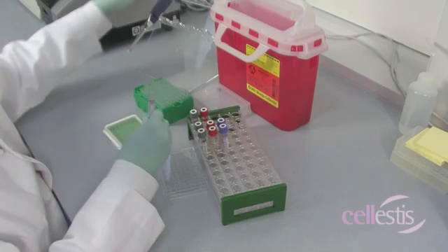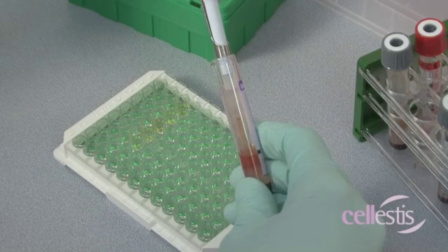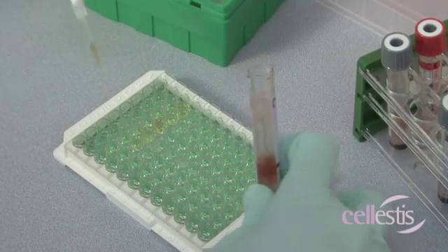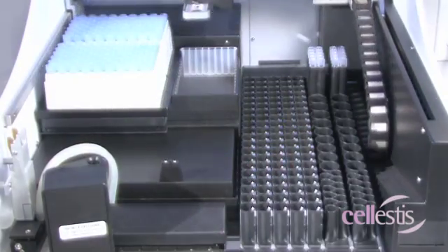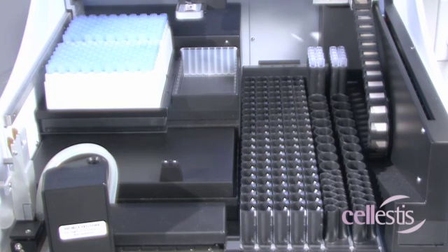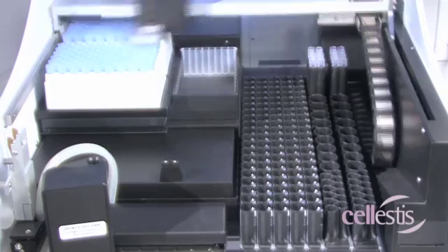The plasma samples can be used to measure the amount of interferon gamma within each plasma sample. Automated platforms allow direct plasma sampling from the tubes, and the ELISA to be performed with minimal operator input.